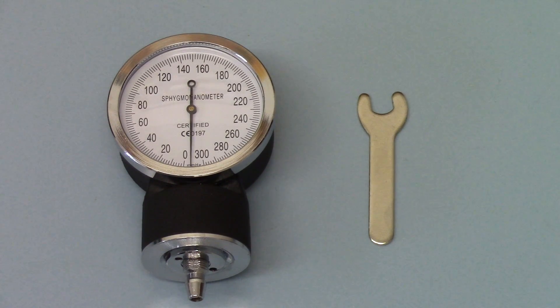Okay, welcome to this instruction video where we're going to talk you through what to do if you purchase one of our aneroid sphygmomanometers and it comes to you and the settings aren't exactly right once it's gone through the postal or delivery service.